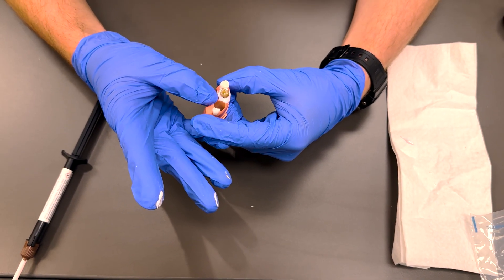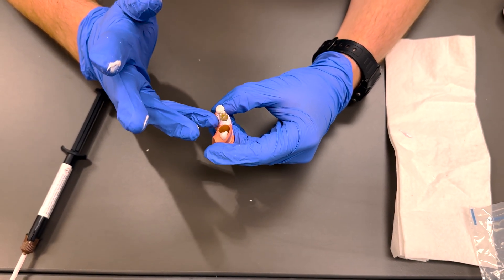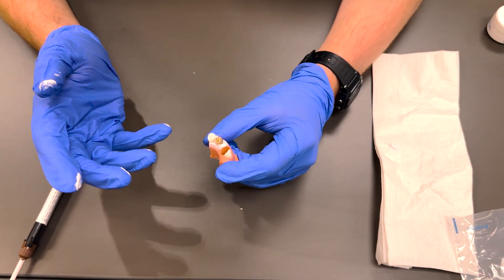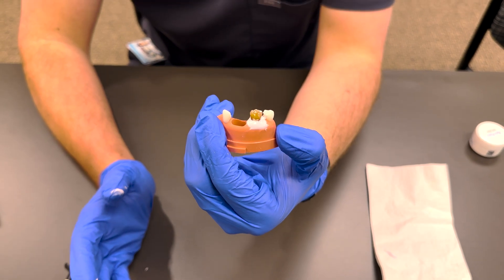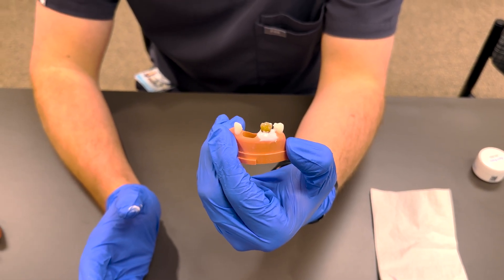That's why it's really important that you do these before you come to lab, because if you do it right when you get to lab, it'll take a while for it to set. And then there is your completed mounted tooth, and you are ready to practice your root canals.